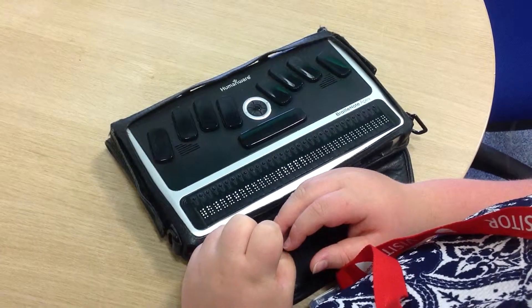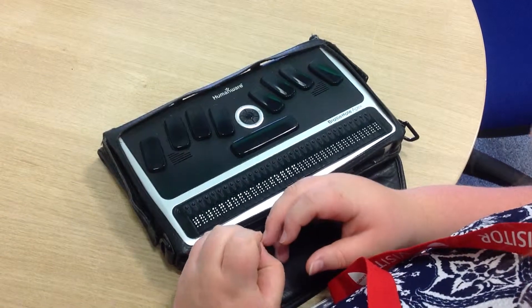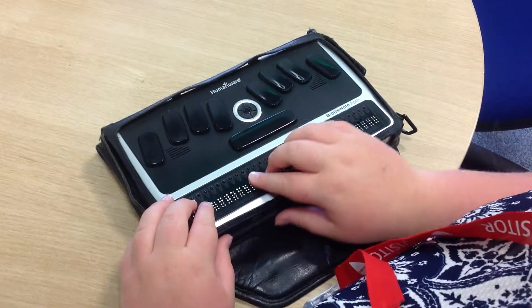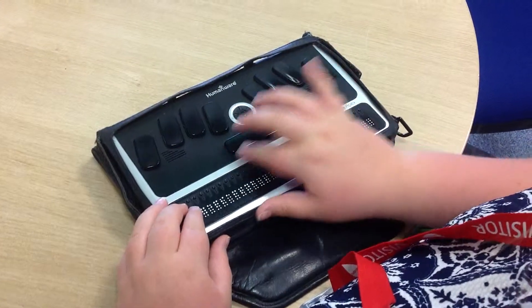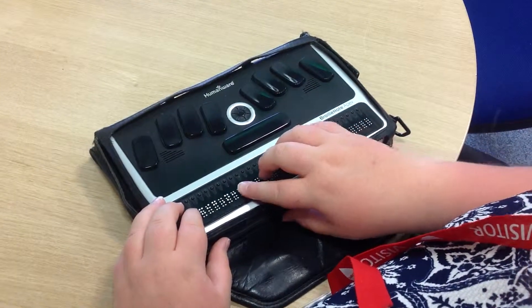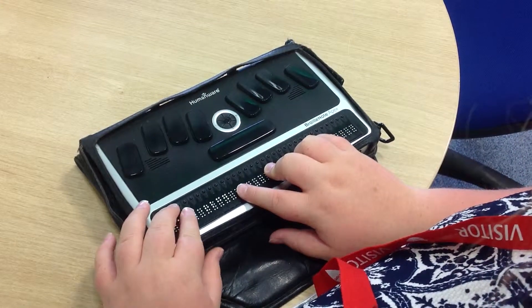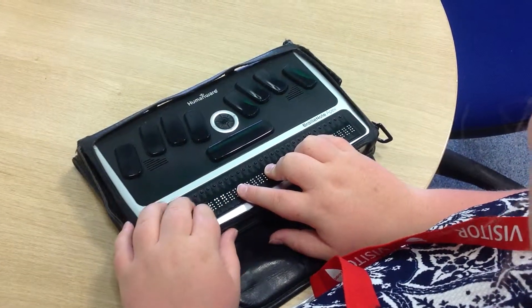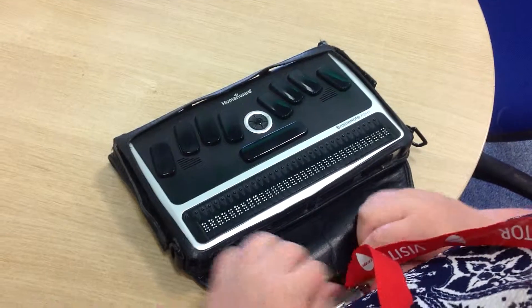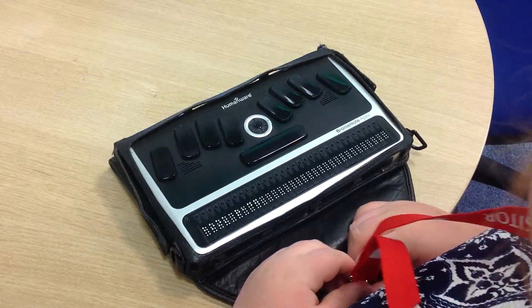There's speech software as well, so you can hear it too — speech and braille coordinating together. If you scroll through or press a button, the display will change each time, which makes things a lot simpler. That's basically the braille display cursors.